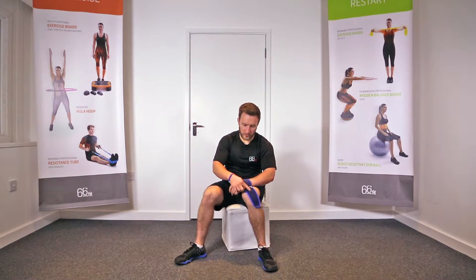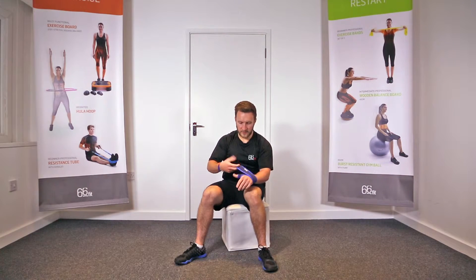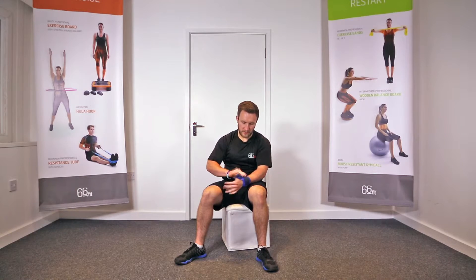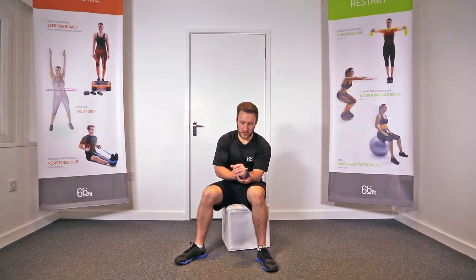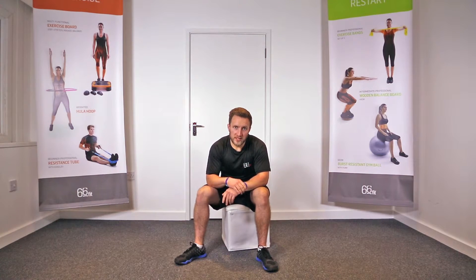Place this round the back of your wrist. The first sticky tab comes towards the back of your hand, then take this one, continue wrapping round your wrist, and fasten it in place. That's what's going to provide plenty of support on your wrist and also at the base of your thumb.